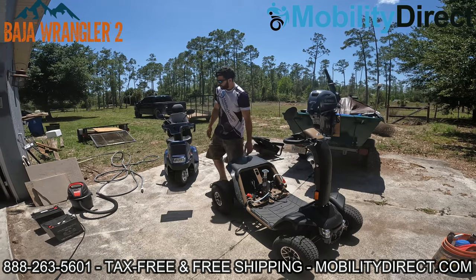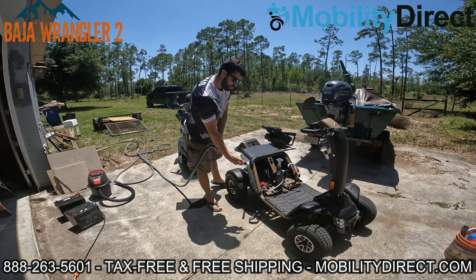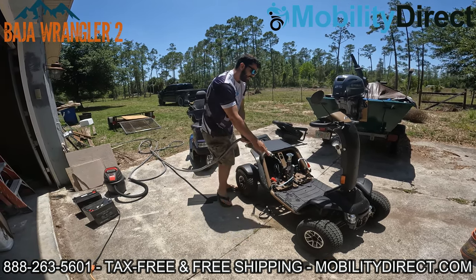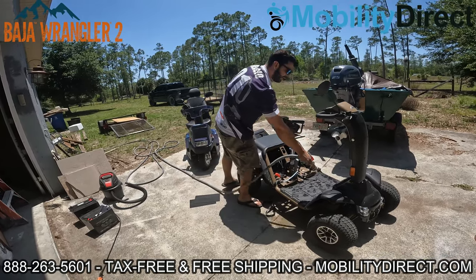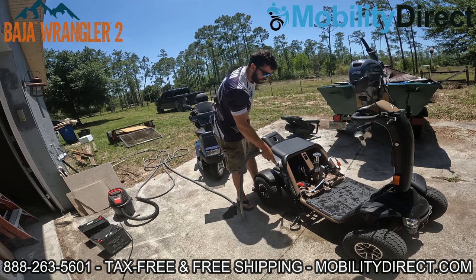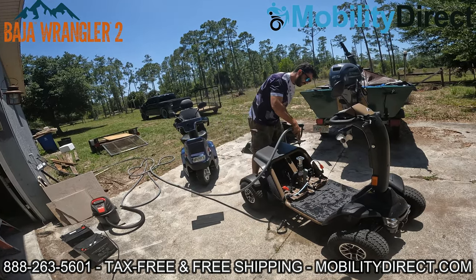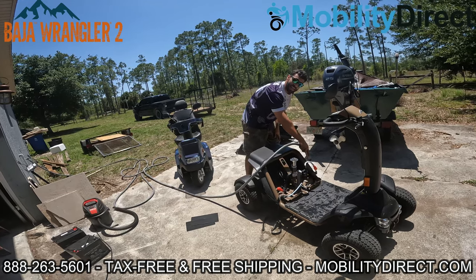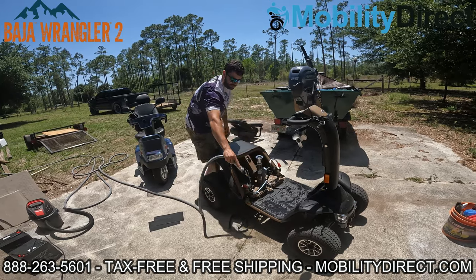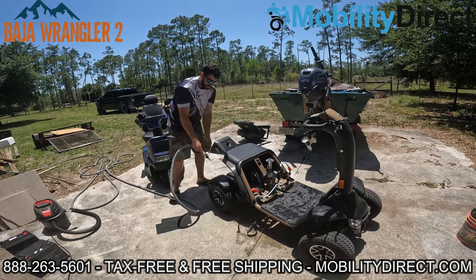I'm going to grab my hose now. I've got a little nozzle switch on it to carefully spray things down. I don't want to go full blast — I just want to get it wet in the areas that need a little wipe down. Just be careful, don't go crazy with it. You don't want to get backsplash into where that controller is. I'm just going to soak the areas that have the mud first and take my time.